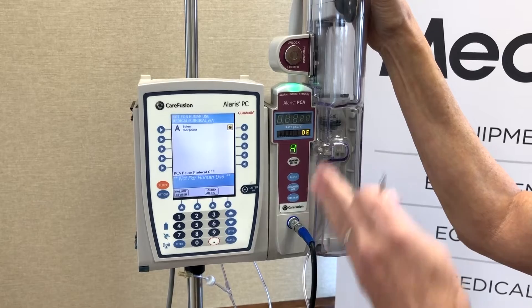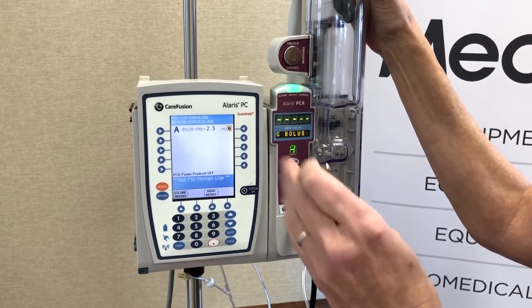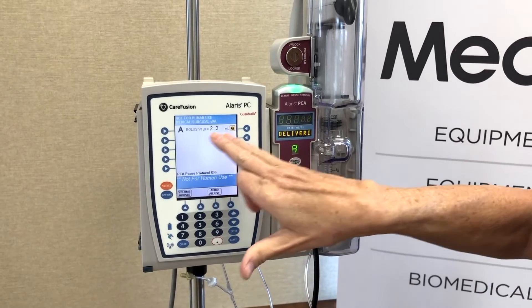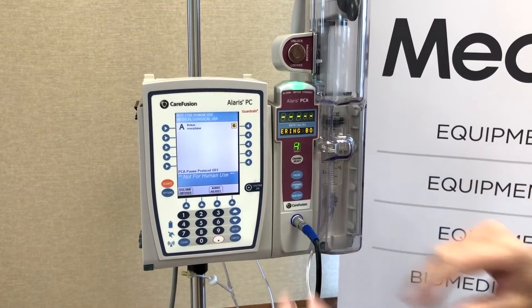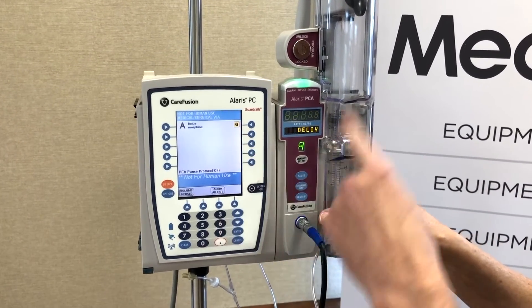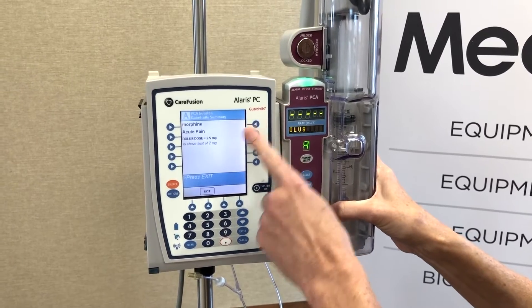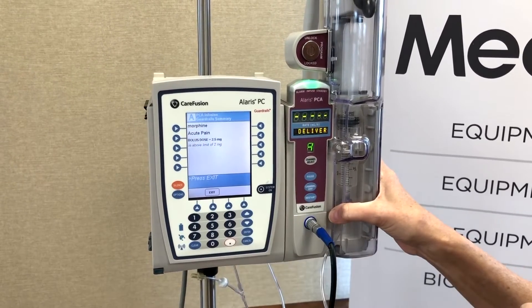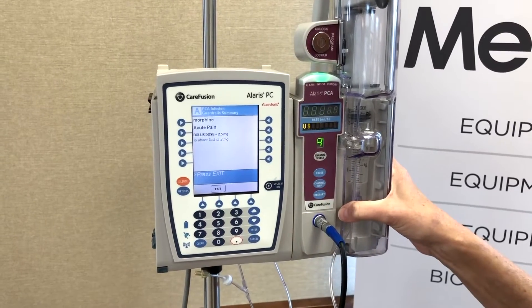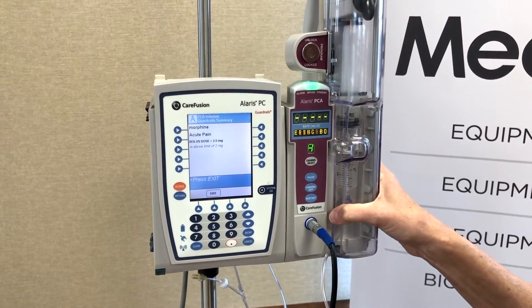This is the smart PCA we talked about — you can have hard stops and soft limits, where soft limits can be overridden. Notice the G right here. This means I'm in a guardrail alert, and if you press that, you can see what the guardrail alert is: the guardrail limit was 2, and I overrode that by half a milligram.